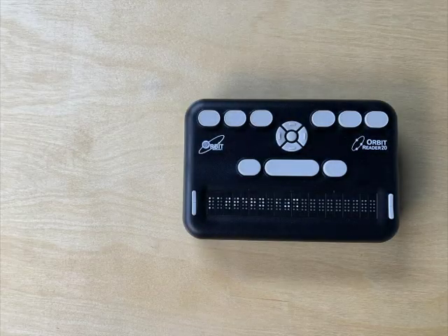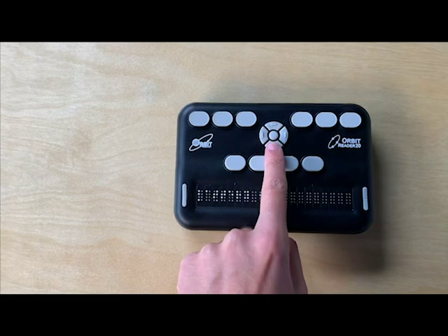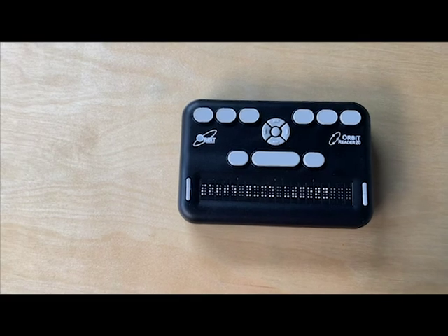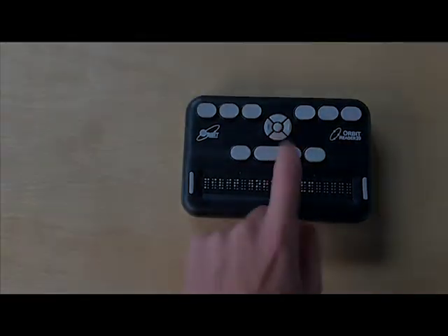The first menu option that will display will be the battery. This is the current battery of your Orbit Reader 20. You will also notice the more frequently used items are listed at the top. This is so you can easily access these items in just a few steps. The following menu items will be in this order.